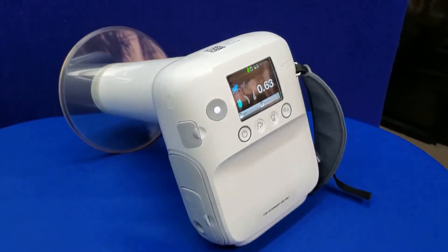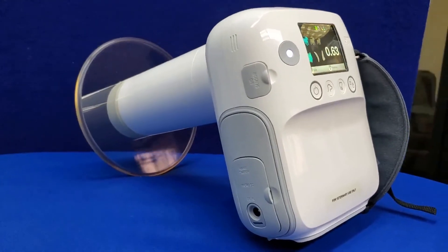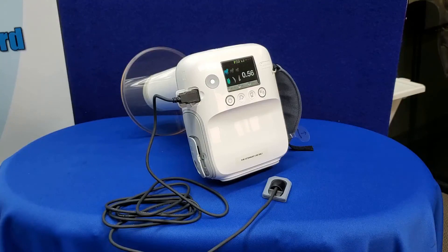All these features allow your practice to do dentistry your way. Free yourself from being shackled to wall mounts or space-taking units. Bionet and Generay allow you the freedom to do what's best for your practice.